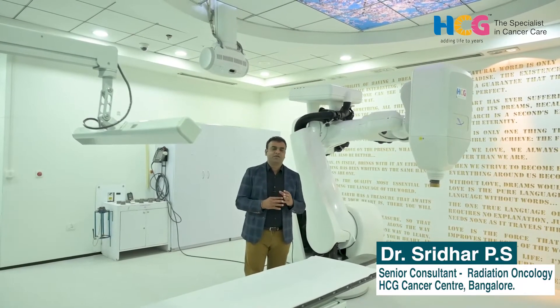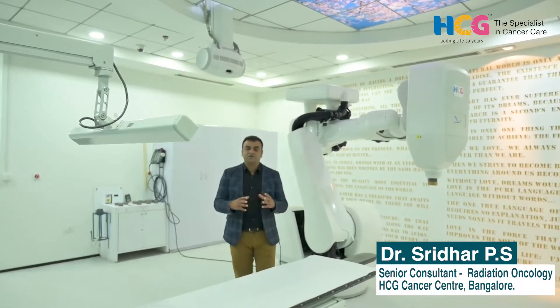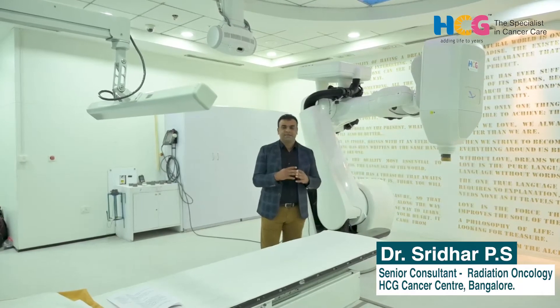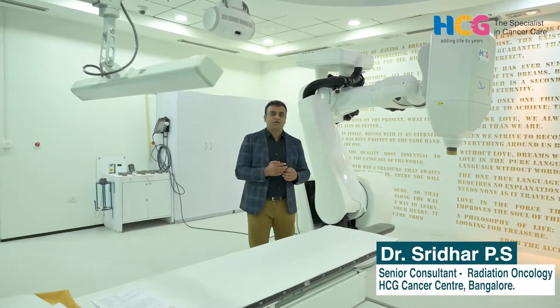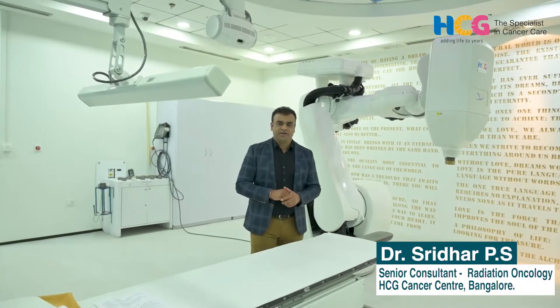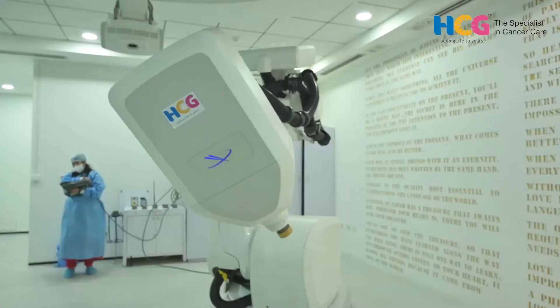With this precision I can deliver a high dose of radiation — what we call an ablative dose, or Stereotactic Body Radiotherapy (SBRT) — which effectively treats the tumor while surrounding structures receive very little dose. When tumor cells die, they produce antigens in the bloodstream, and antibodies are developed that act on cancer cells throughout the body. We call this immunomodulation.